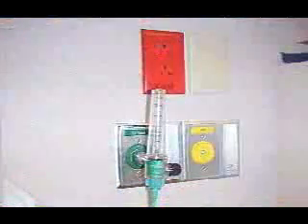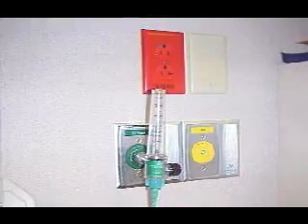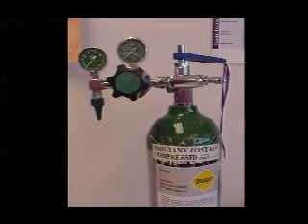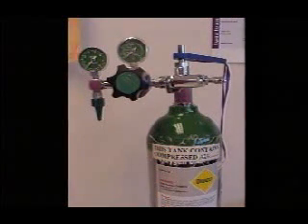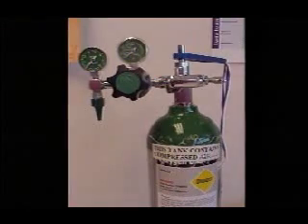Oxygen may be supplied by piped-in wall outlets, freestanding tanks, or what are called oxygen concentrators. Wall outlets have a flow of oxygen that is regulated by a flow gauge. An oxygen tank has a flow meter and a pressure gauge that indicates the amount of oxygen remaining in the tank.